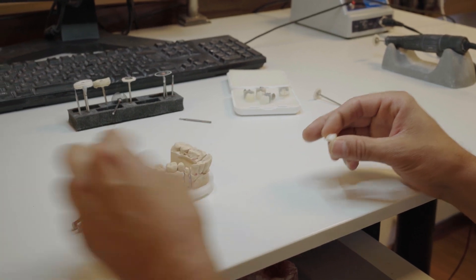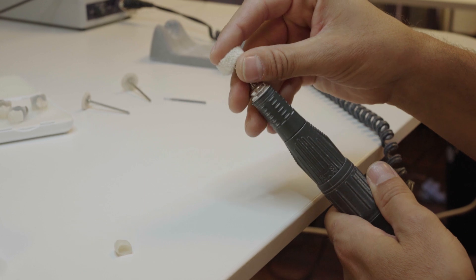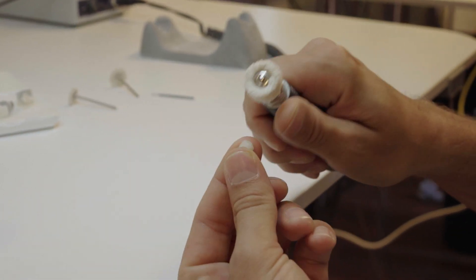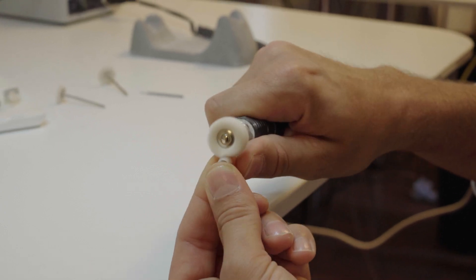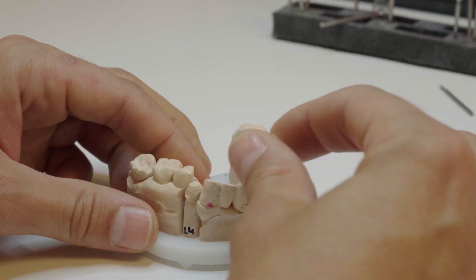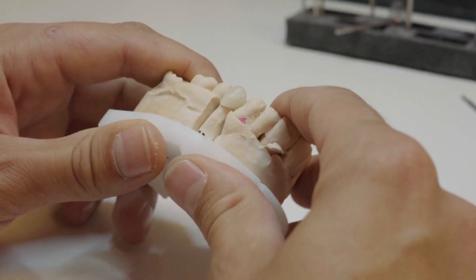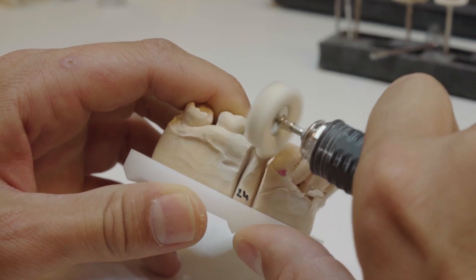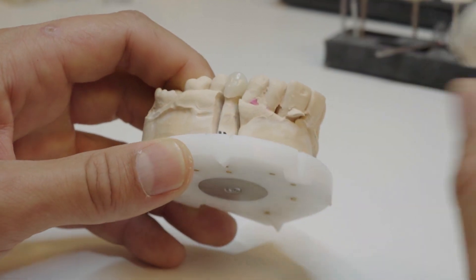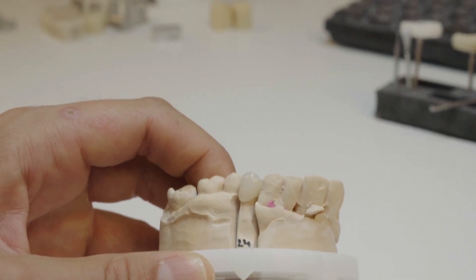Decisive for me as a technician is the uncomplicated and simple polishability of the Edelweiss block. With other composite blocks available on the market, in order to achieve a perfect gloss, you lose the surface very quickly and the time spent on the construction to achieve perfect contacts was wasted. I don't know of any other blocks that can be finalized with soft brushes made of goat hair and cotton to a lasting shine.